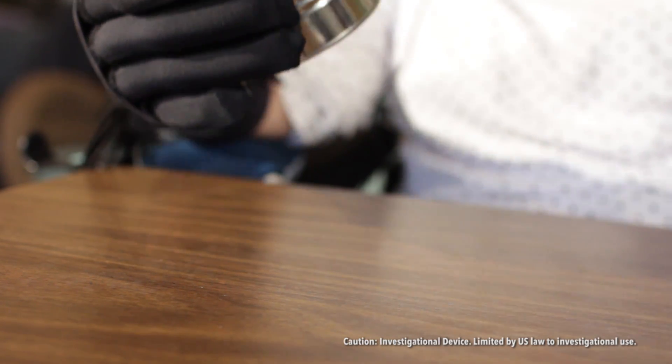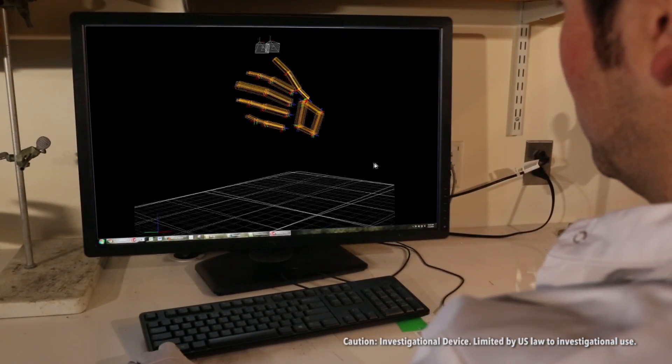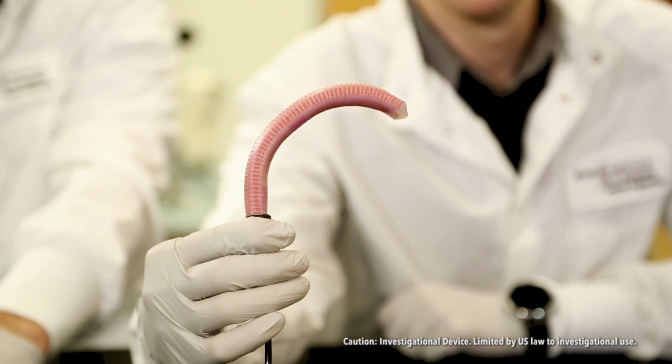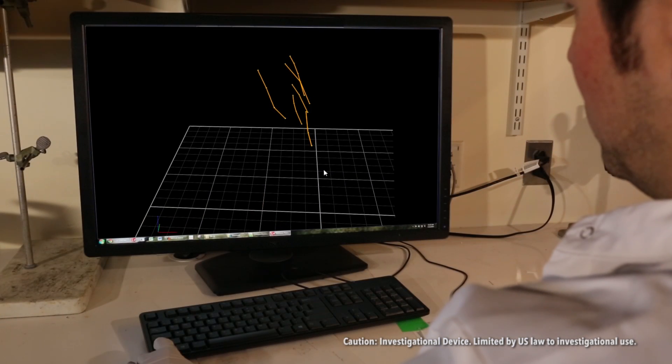It feels really nice. Things like this round are very difficult for me to do one-handed, if at all. My hand doesn't work very well fully extended, so it's wonderful to be able to pick this up. We can design an actuator to match entirely the anatomy of the user's finger — we can specify where the knuckles are, where the bending parts, where the extending parts, and even for the thumb, where we have a much more complex motion, where the twisting of the actuator will take place.